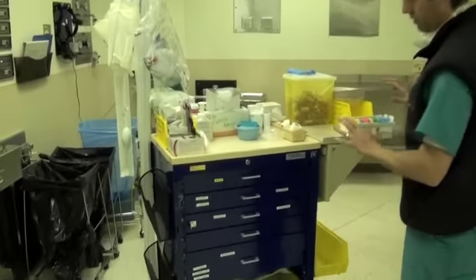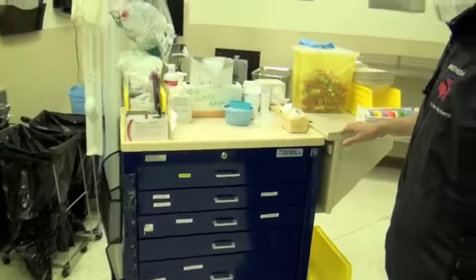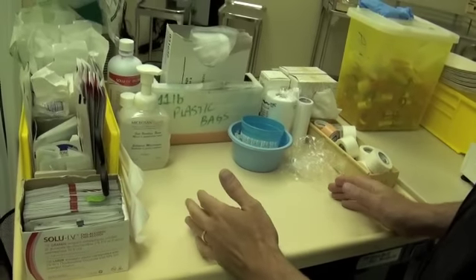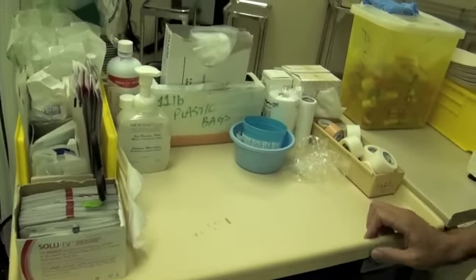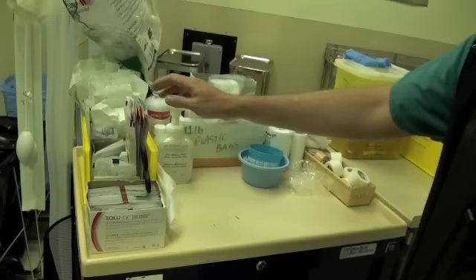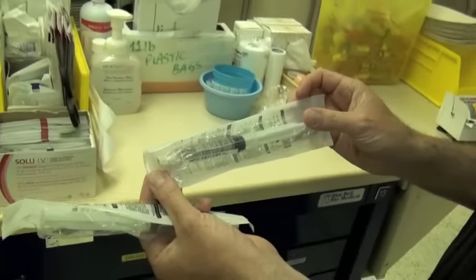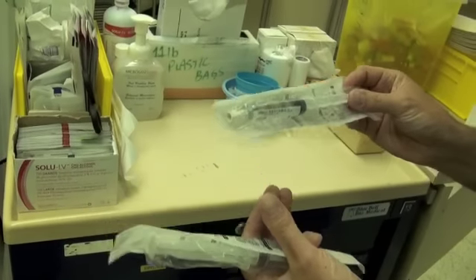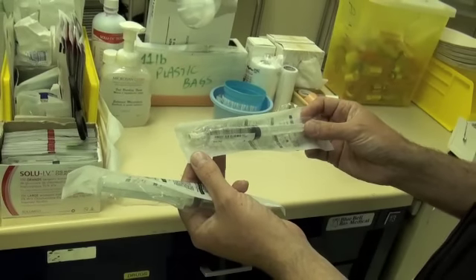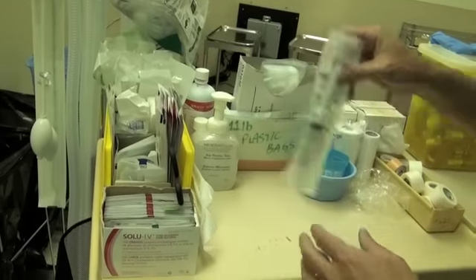The overview of the cart is that we have 5 drawers and a bunch of intravenous fluid at the bottom. The top has an open space in the middle in which we can draw up our drugs, lay out our drugs, and lay out our airway equipment. The equipment surrounding that open space includes gauzes and these special saline syringes — 10cc syringes of normal saline, sterile in a package. These are used to dilute down many medications, such as ephedrine and hydromorphone. With 10cc you're able to dilute it down into the appropriate volume and label it with the concentration.